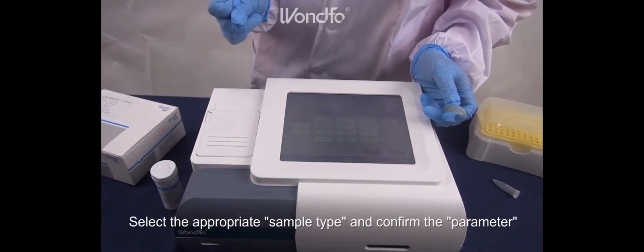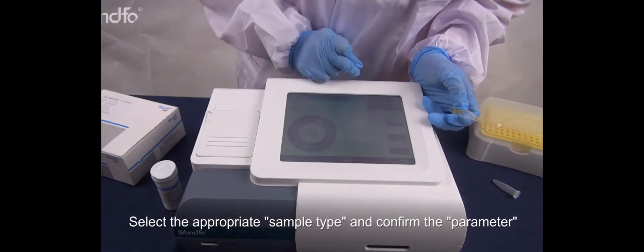Select the appropriate sample type and confirm the parameter.